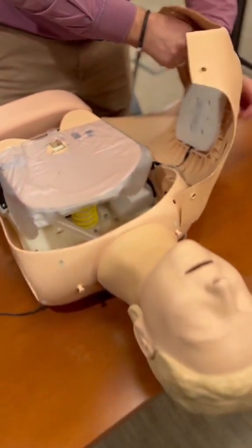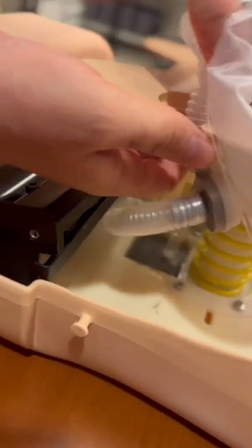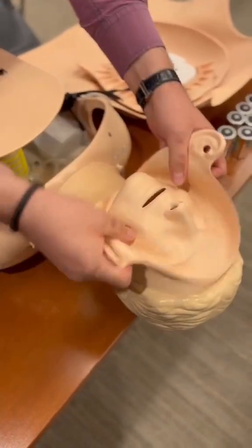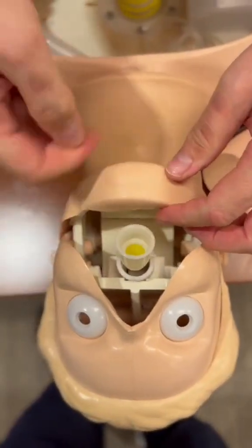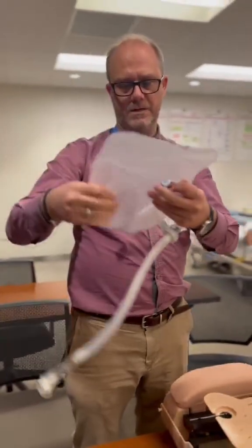Wires underneath. Here's our old lungs. Pop up, and then move the face part. Pull towards you. They're fiddly removing the neck skin. And obtain your new lung.